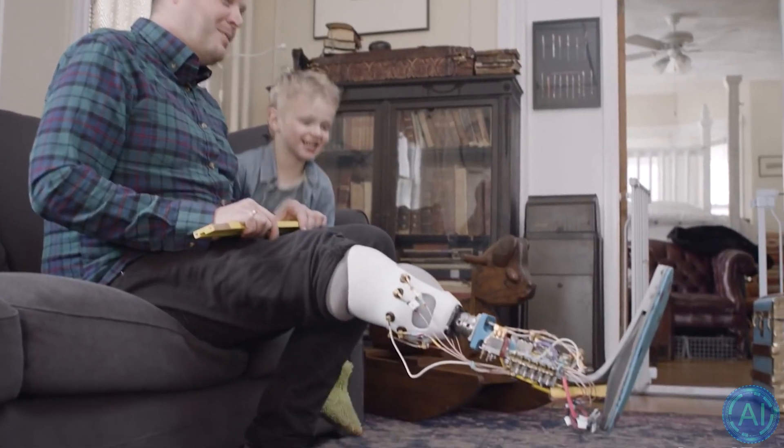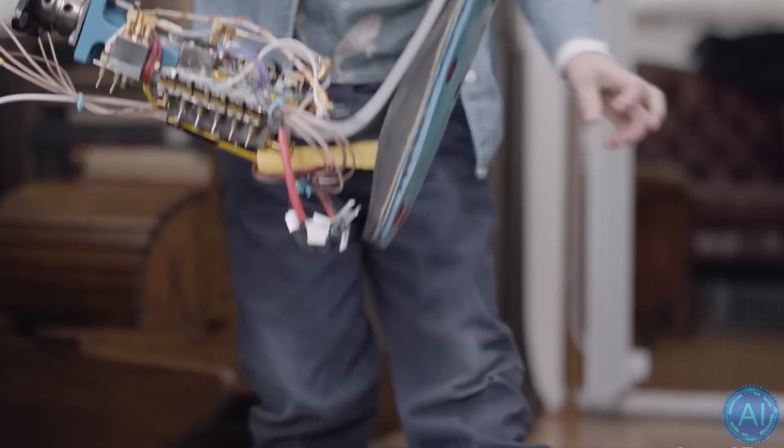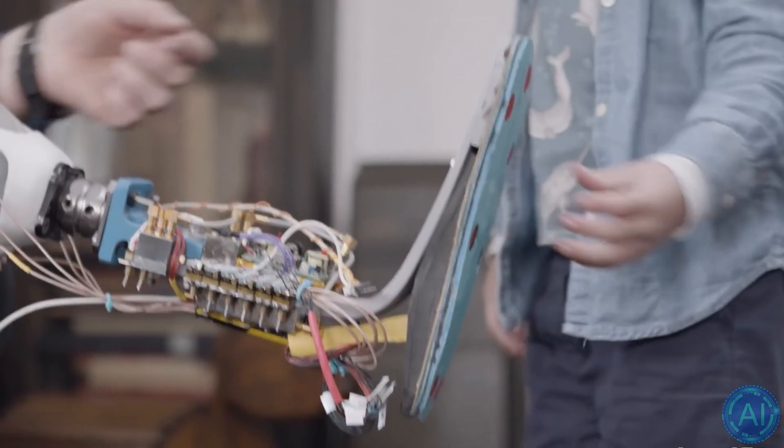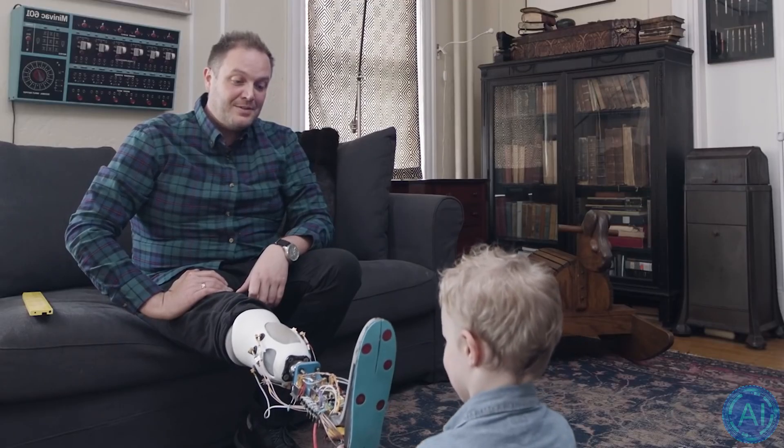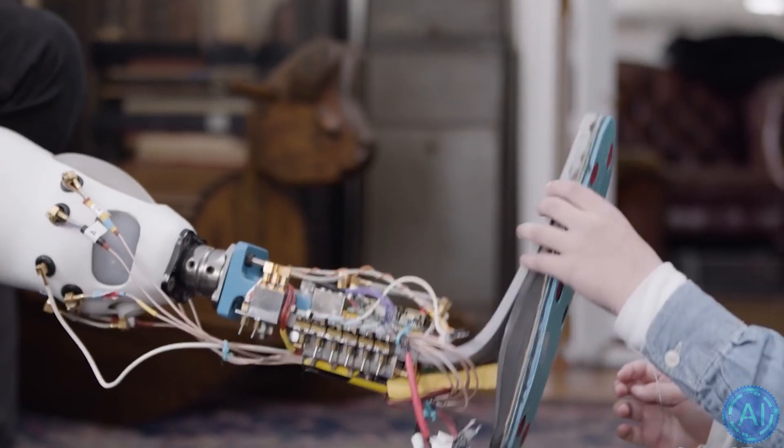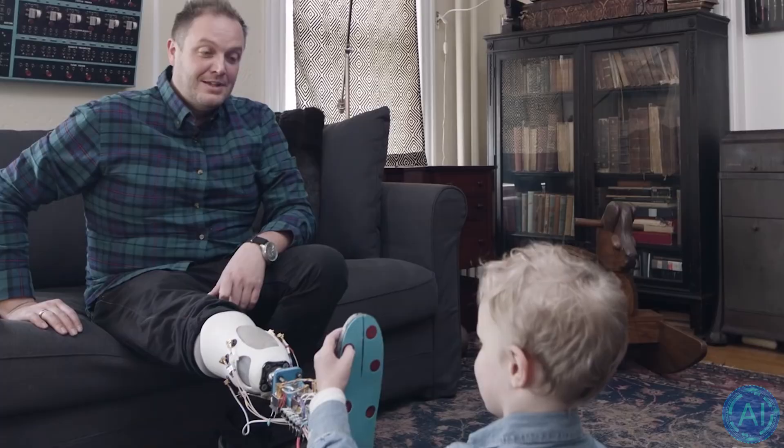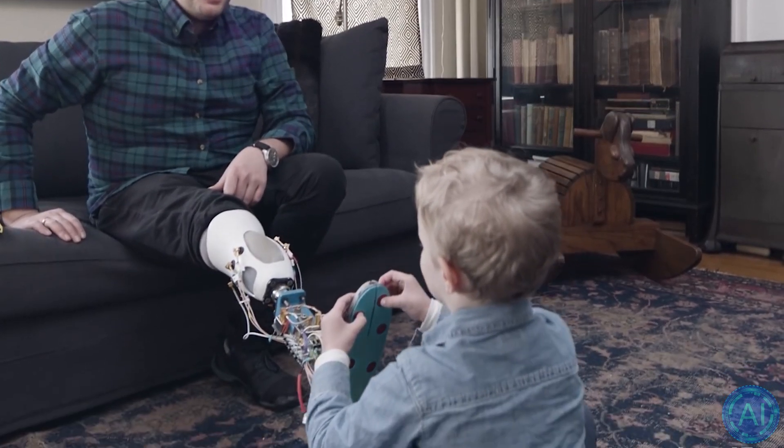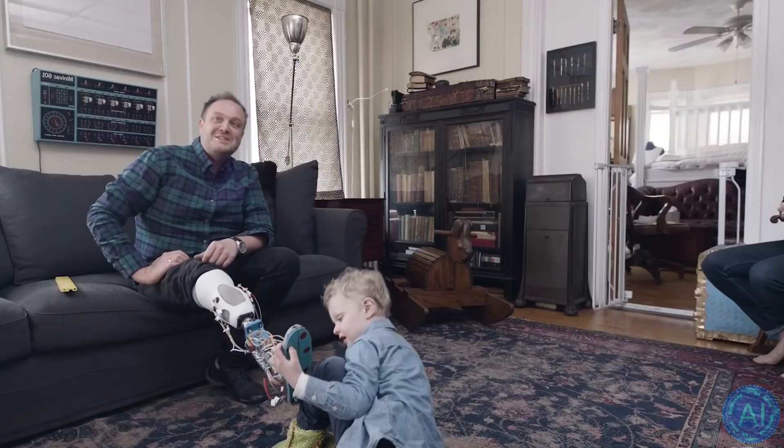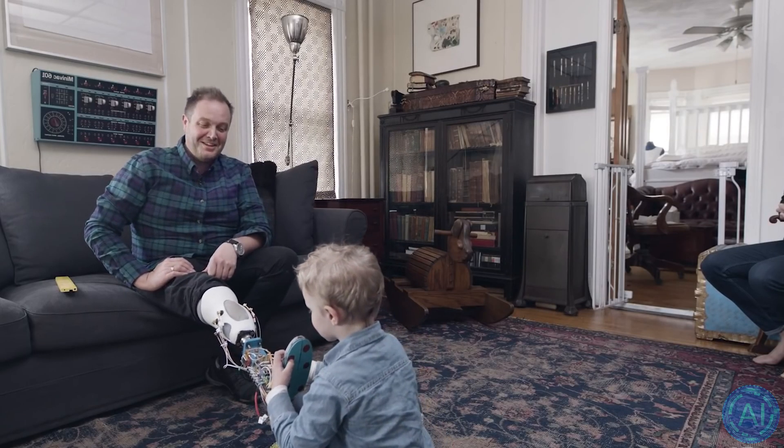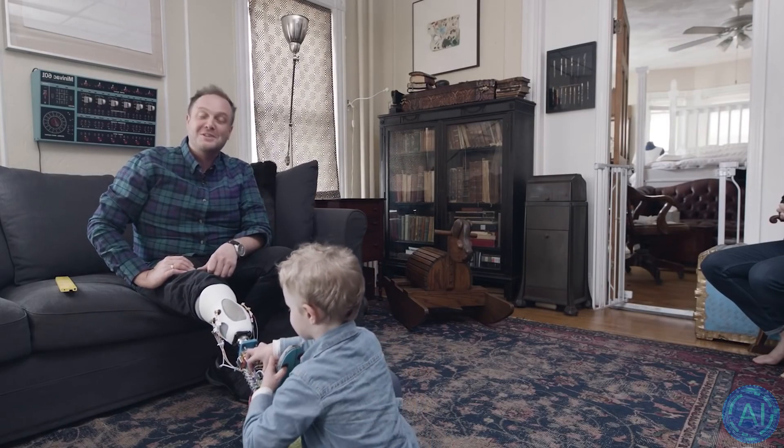You want to tickle the bottom of papa's robot foot? How about the bottom all the way in the bottom? I'll push that one. Whoa, I feel that. Can you push other buttons? You're touching my piggy toe and my big toe. And it actually really tickles. I hadn't thought some of this all the way through.